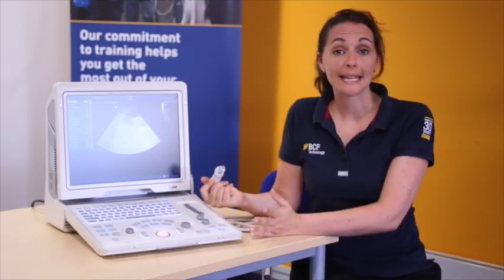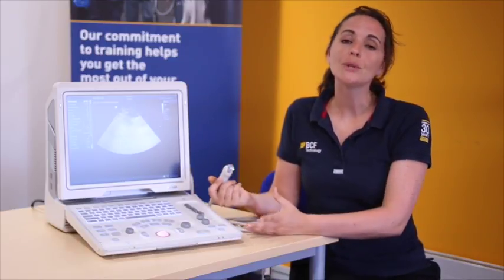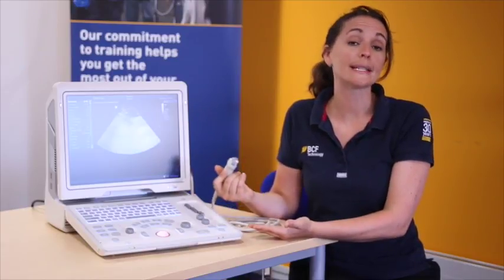Now we're ready to start scanning. It's really important with any kind of scanning that you're doing that you have a protocol — just as you would with how you're going to scan your animal — that you have a protocol to go through with your machine. And that's what we're going to go through now, step by step.